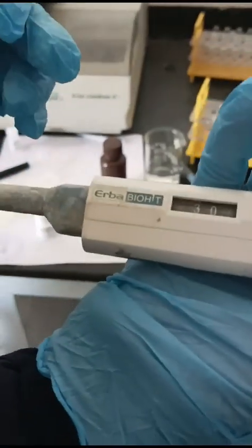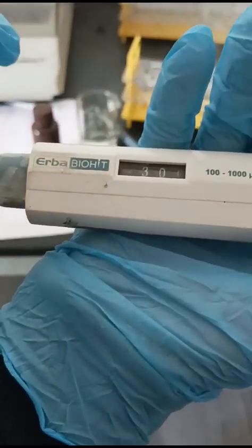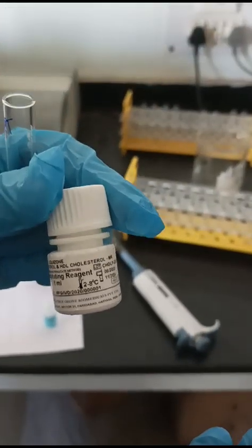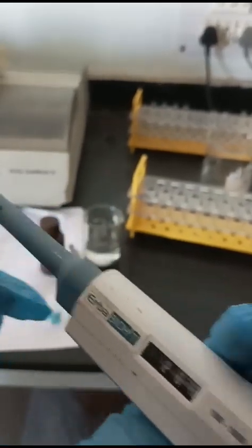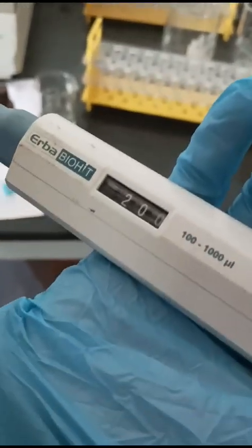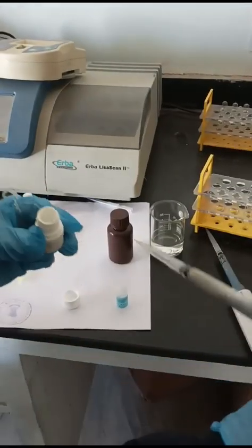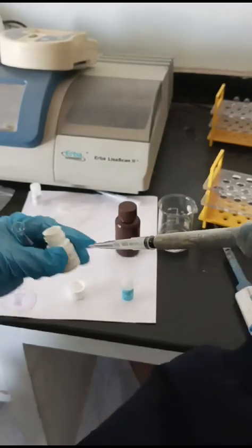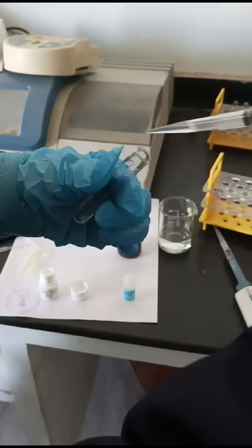For the precipitating reagent we will be taking 300 microliters, and I have taken 200 microliters of serum here. We will be mixing these two amounts. I will be pipetting out 300 microliters into the test tube labeled as PPT, signifying precipitation.